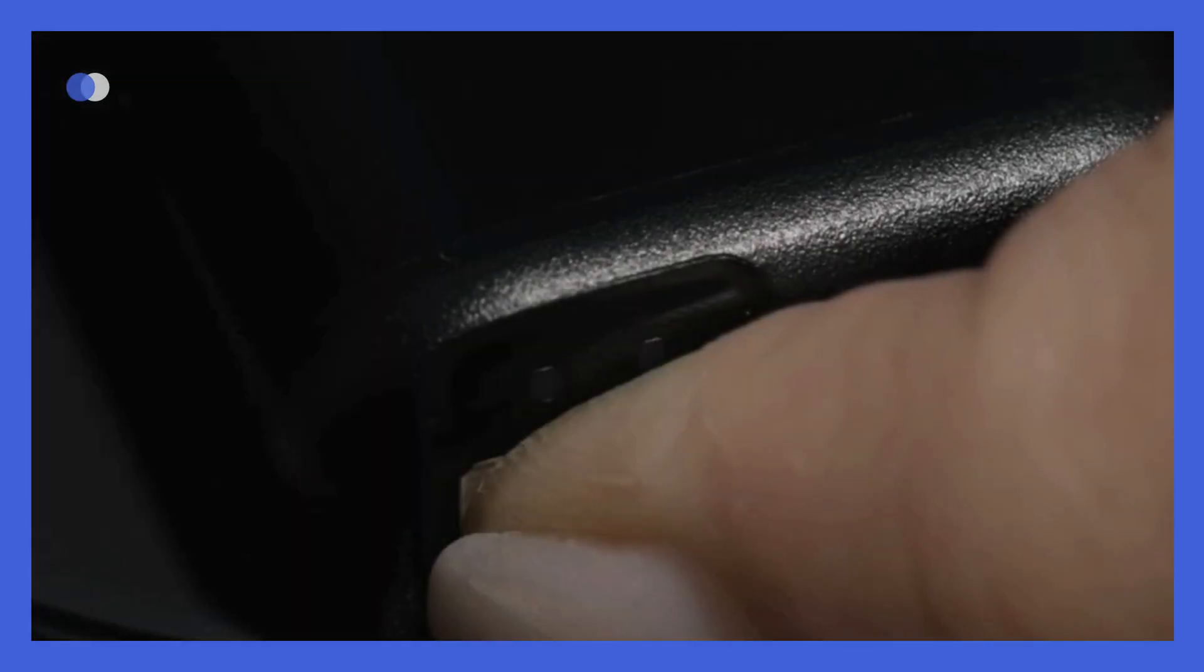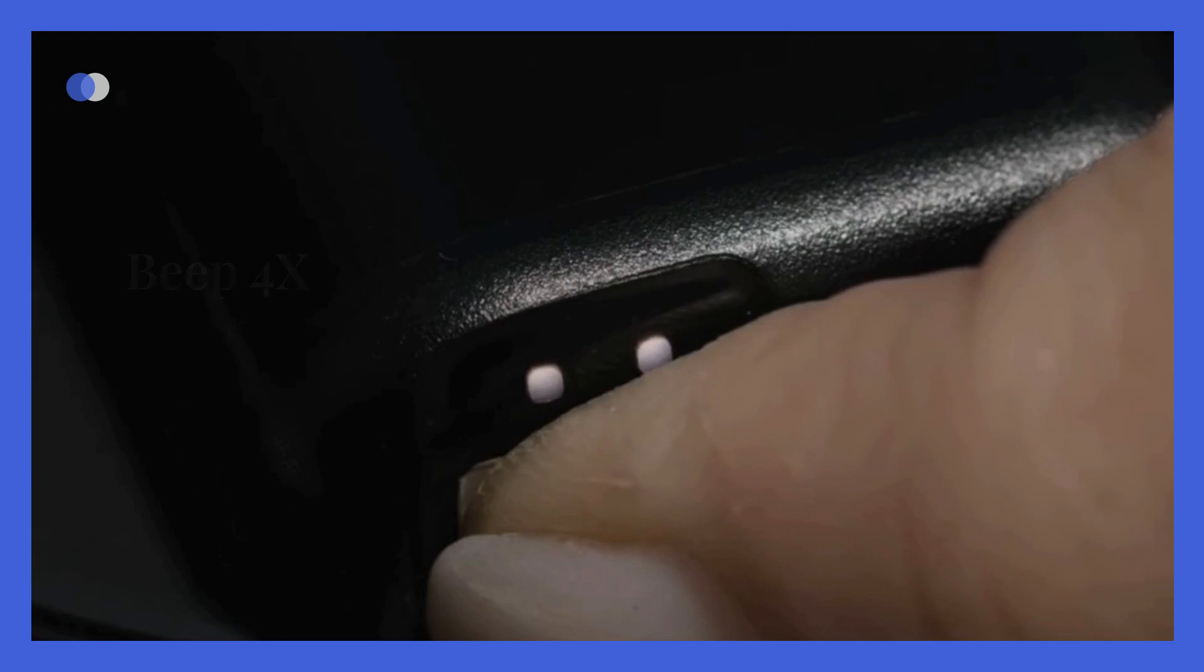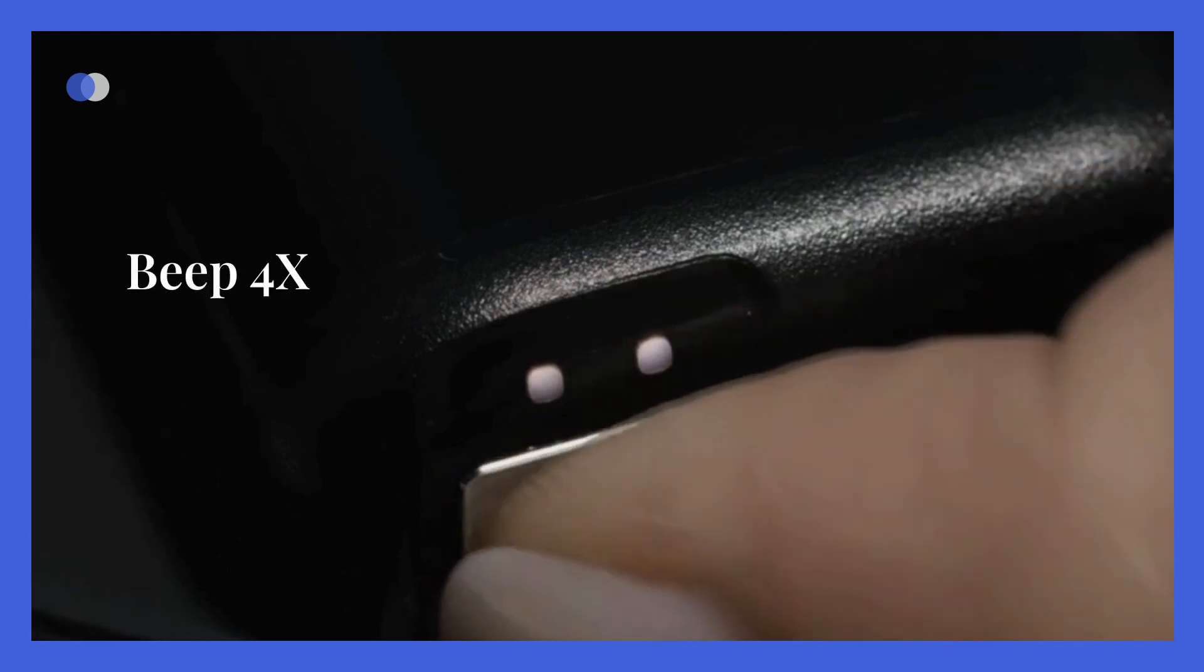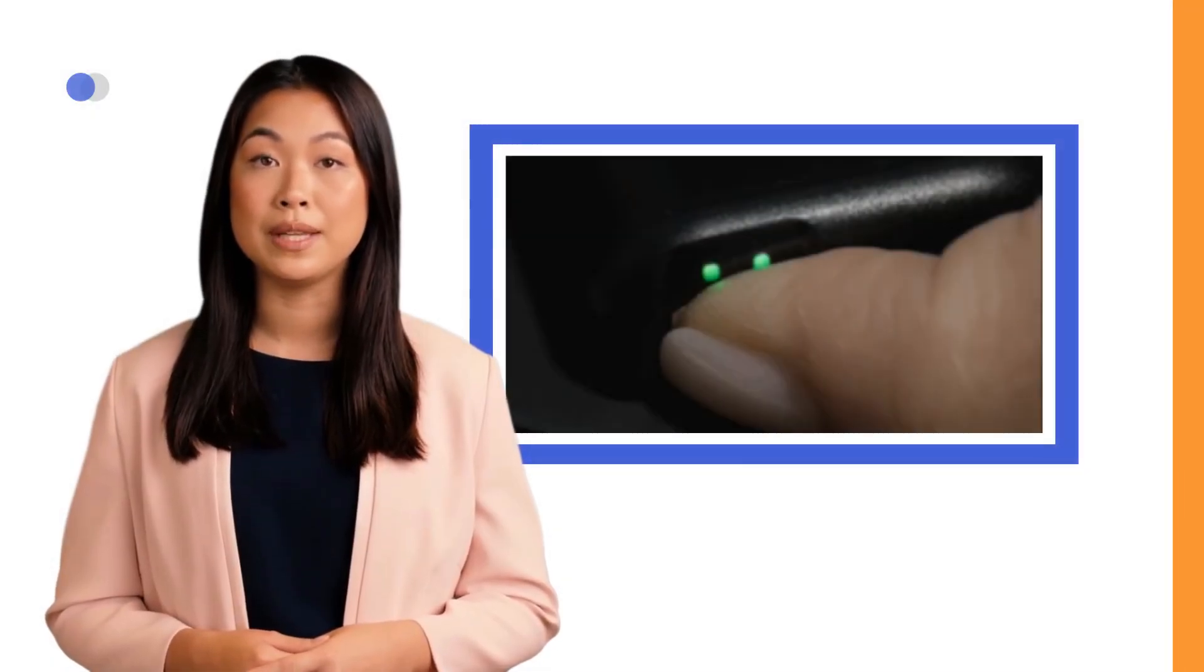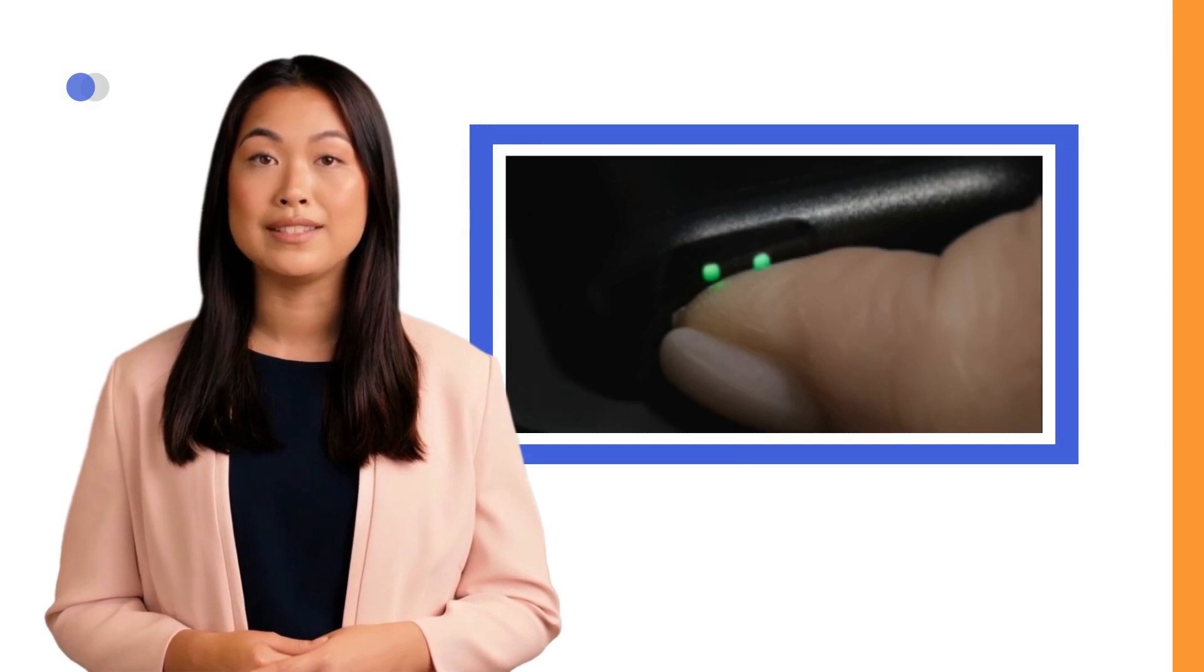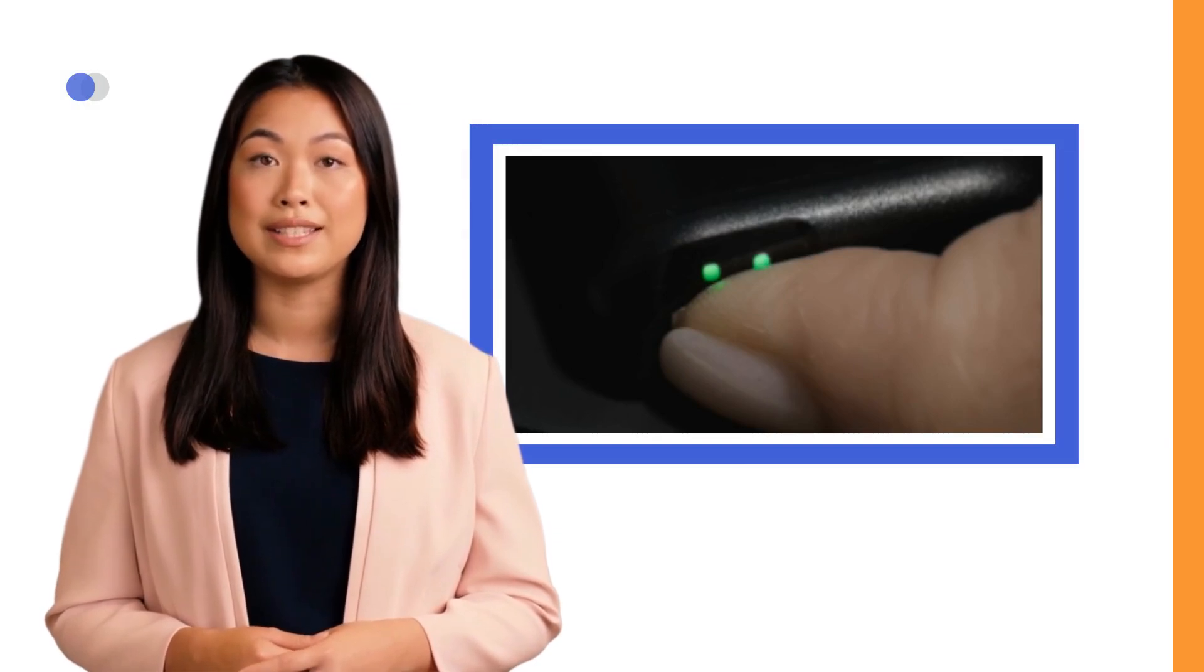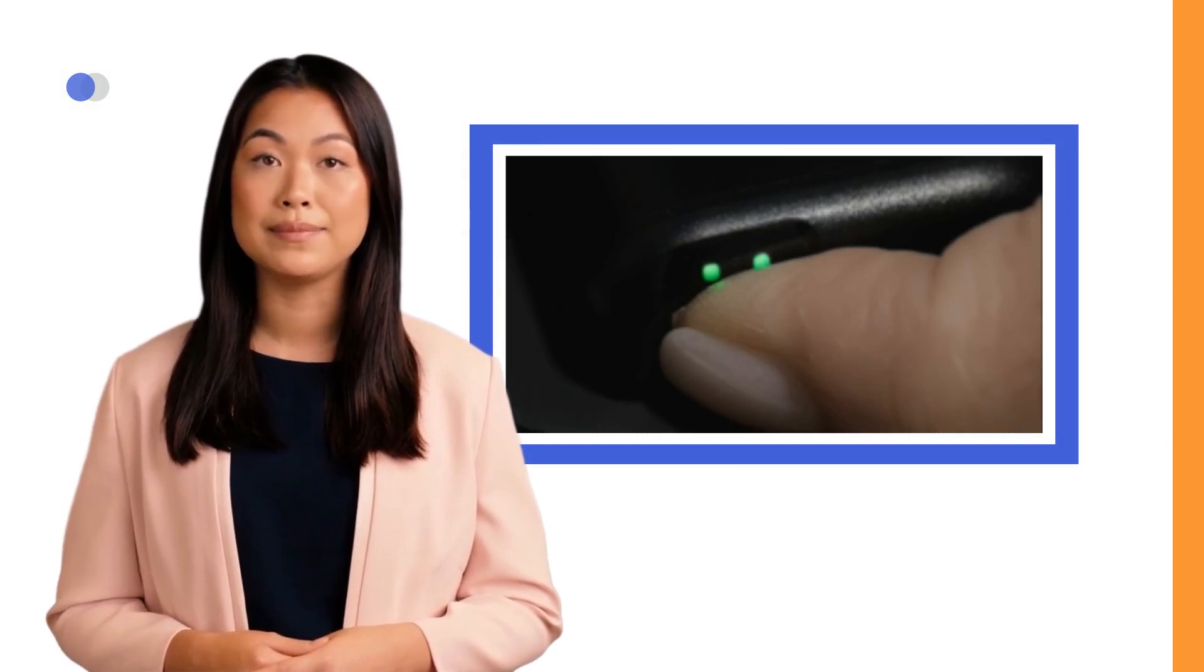To turn on the pump, place it on the charging pad. While it is on the charging pad, press and hold the pump button until you see the pump status lights on the pump light up. The pump will beep 4 times when it has turned on and is ready to use. Be aware that when you first receive your pump, you may be able to see the pump status lights when the pump button is pressed. This does not necessarily mean that the pump is turned on.